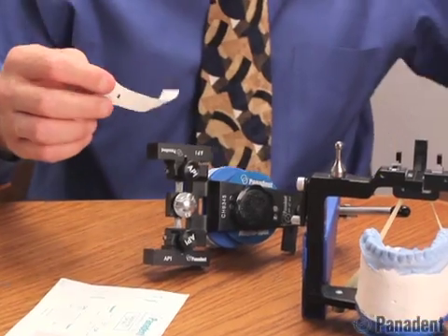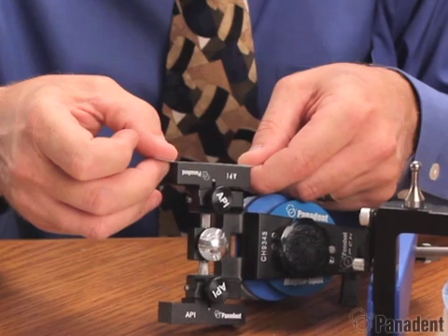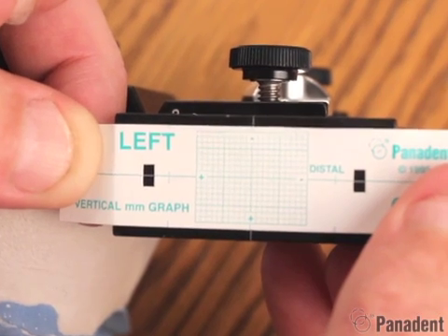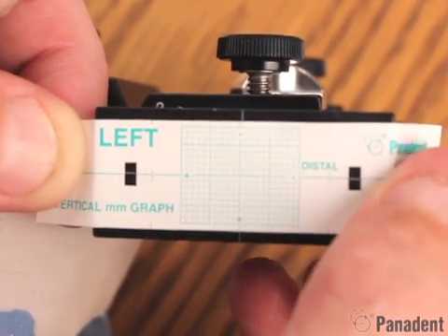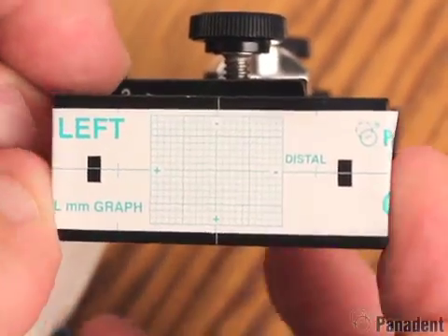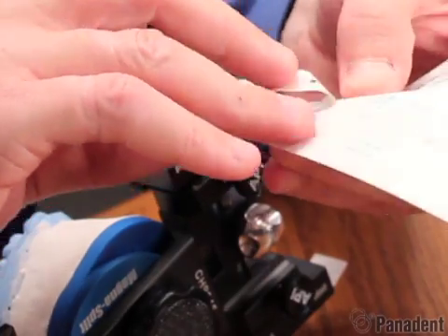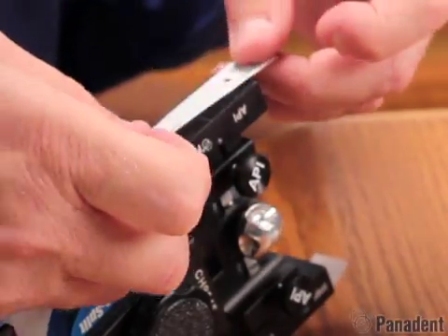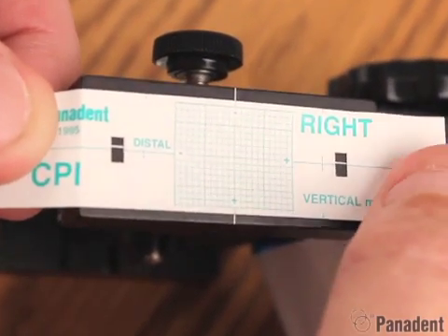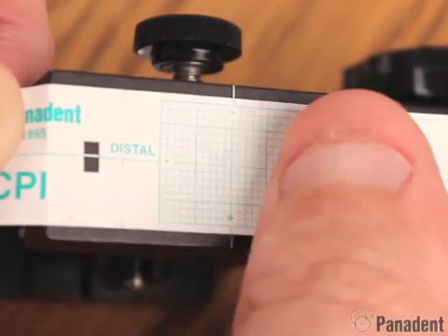I'll go ahead and put on my glasses and line up the graph paper, looking through the window to line up the horizontal line on the graph support to the horizontal line on the graph paper. Then I'll also look at the vertical line on the graph support and line that up with the vertical line on the graph paper. I'll go ahead and do that to the other side as well — lining up the horizontal and vertical lines — and stick that into place.